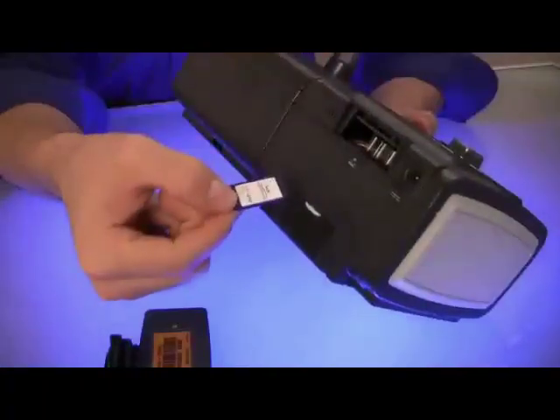If your CPAP machine only has an SD memory card, you do not need to watch this educational video.